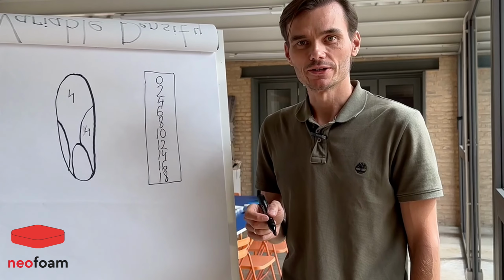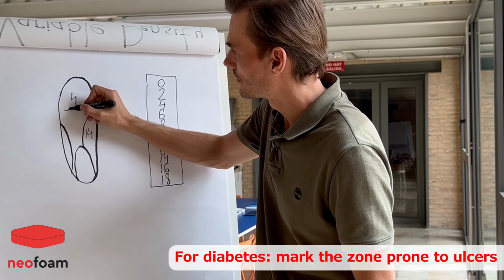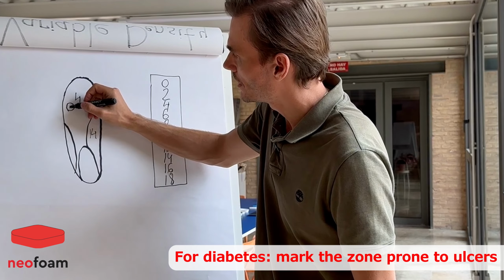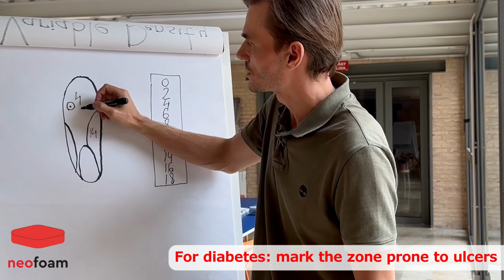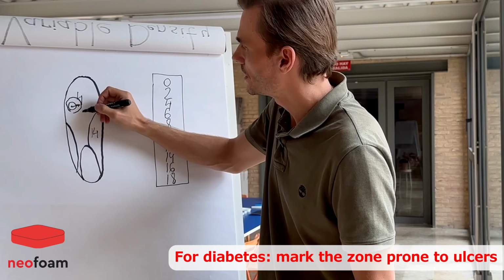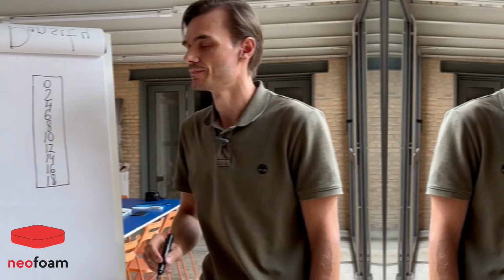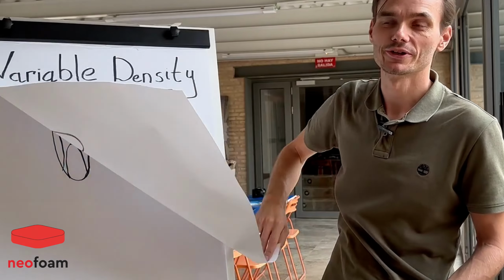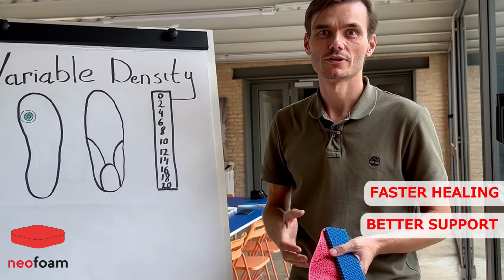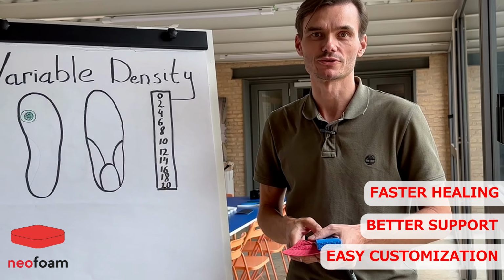For diabetes, the same way, we can assign some zone that is prone to ulcers, and in the center we will make it as soft as possible, and then gradually the density will increase to the standard number that we assign to the set. We call this approach variable density technology. It promotes faster healing, better support, and easy customization for any type of insole.